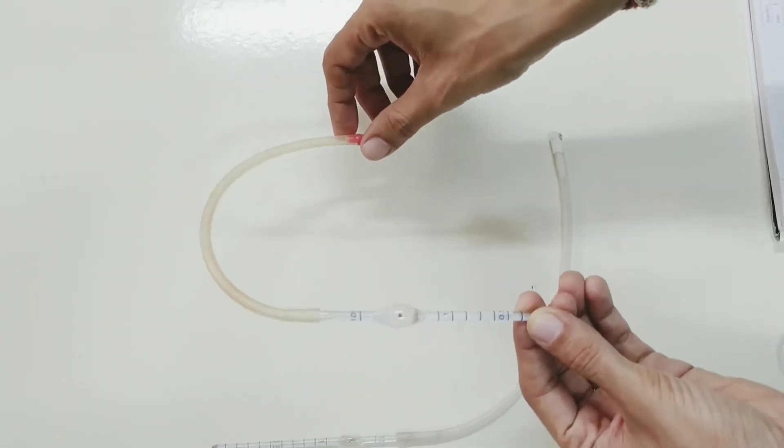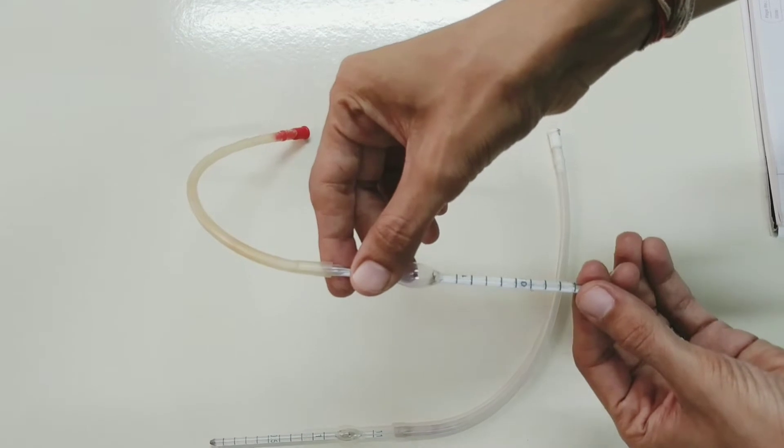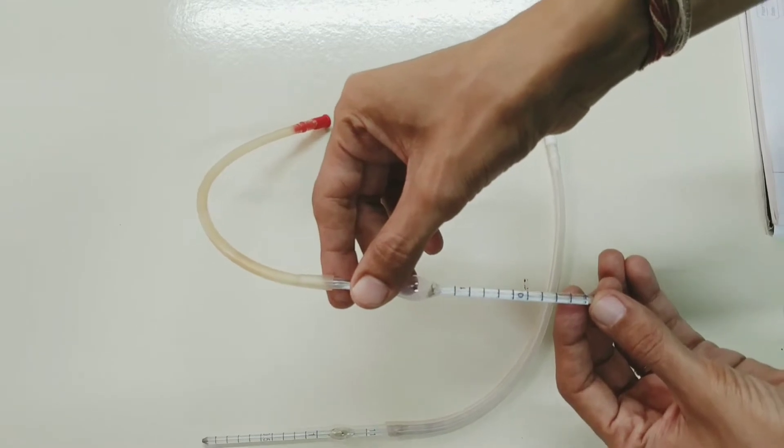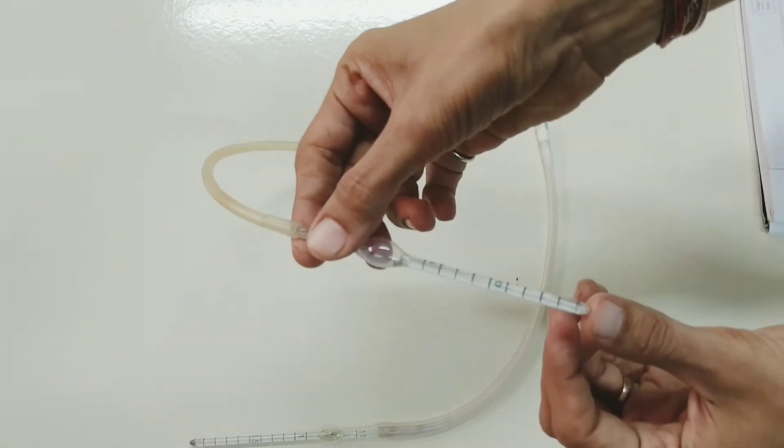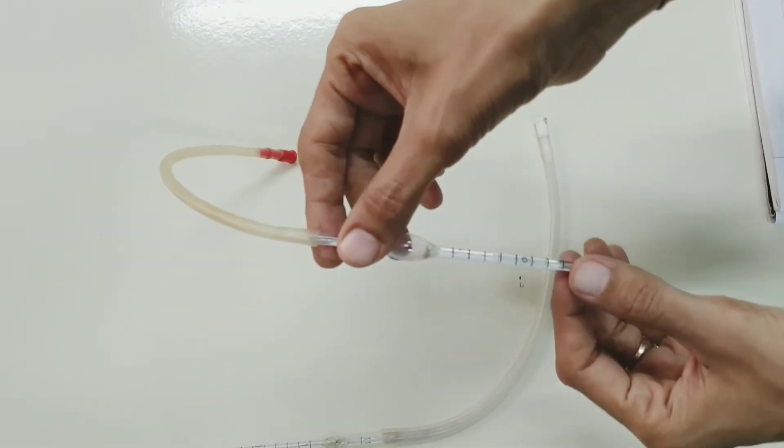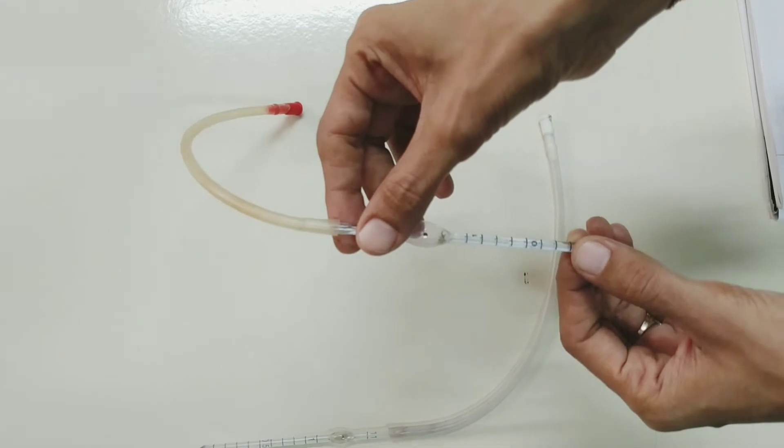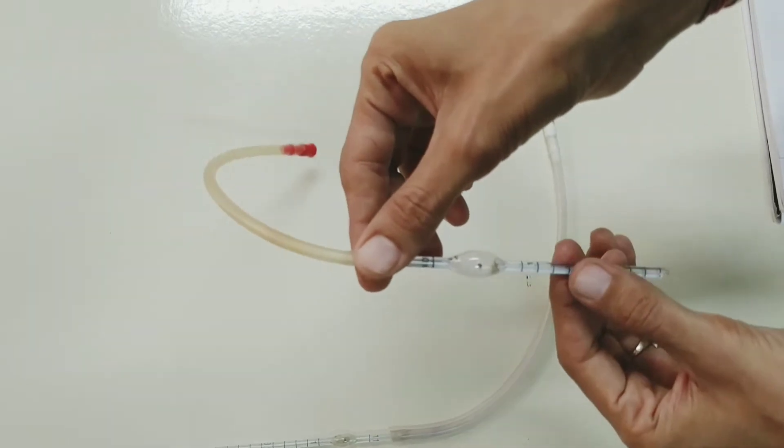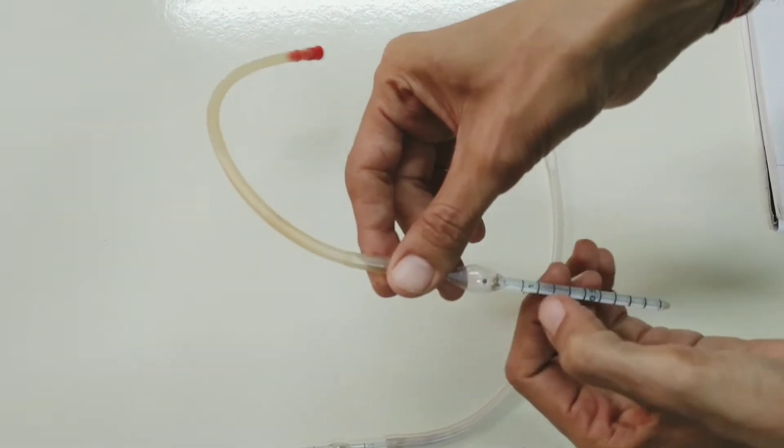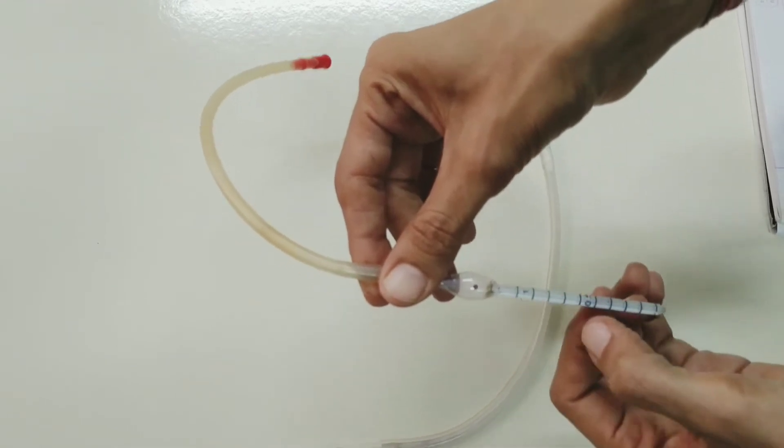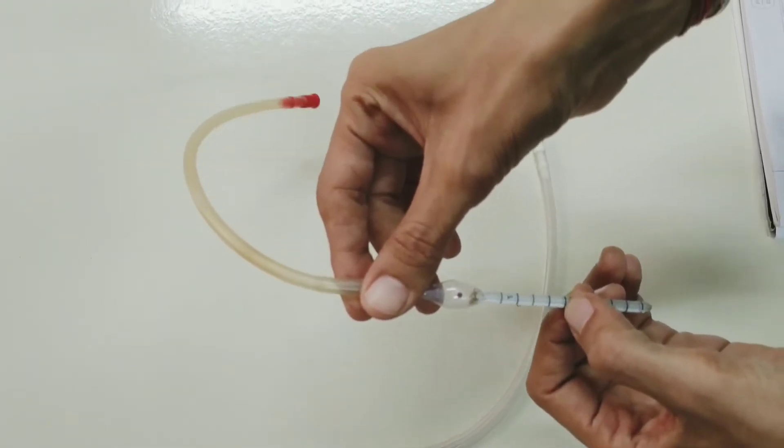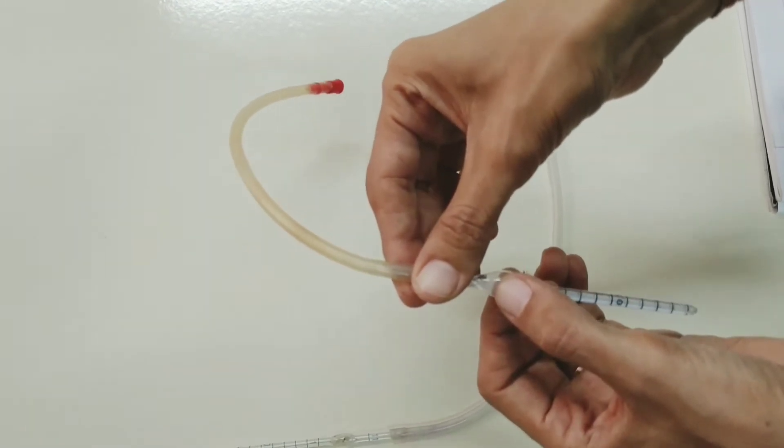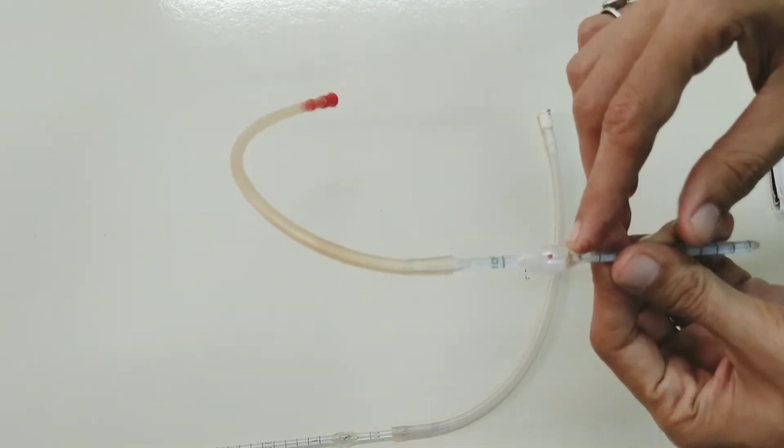Starting with the parts, this is the stem part. It is long, narrow with a capillary bore and well-grounded conical tip. It is divided into 10 equal parts but has only two numbers. In the RBC pipette, the numbers are 0.5 and 1. The 0.5 is present in the middle of the stem and 1 is at the junction of stem and bulb.